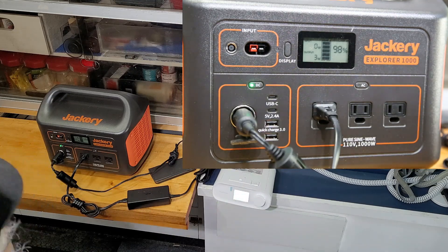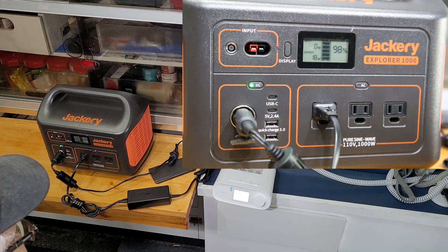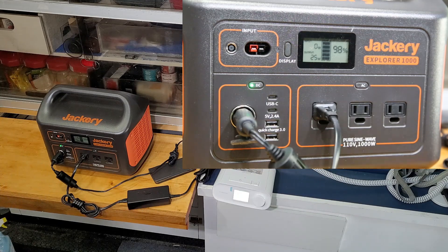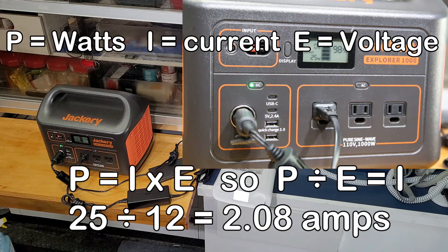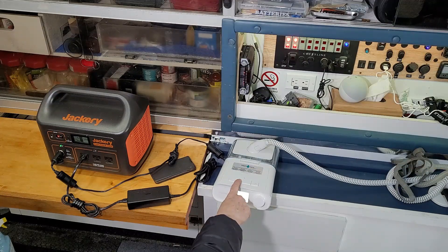And there we go — starting at 18 watts, it's ramping up, and it's settling and staying at 25 watts power draw. So my power draw is 25 watts divided by 12 volts, which gives me 2.08 amps — instead of the 6.5 amps from before. That's quite a big savings in power.